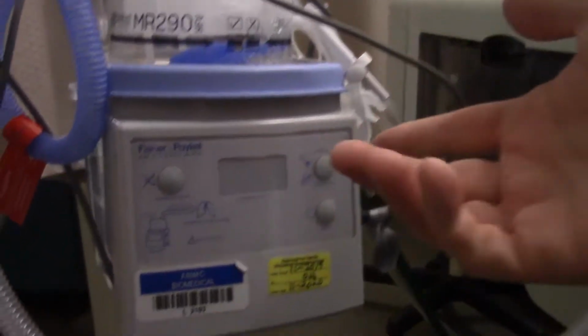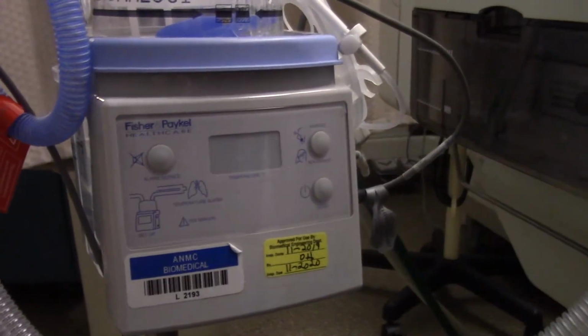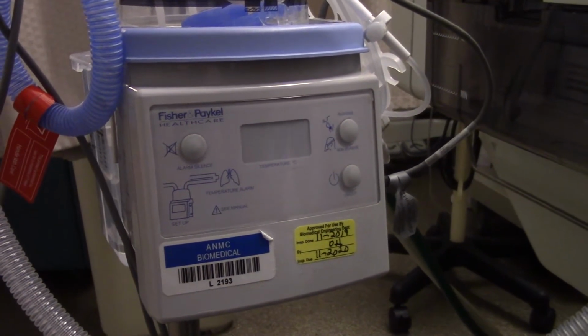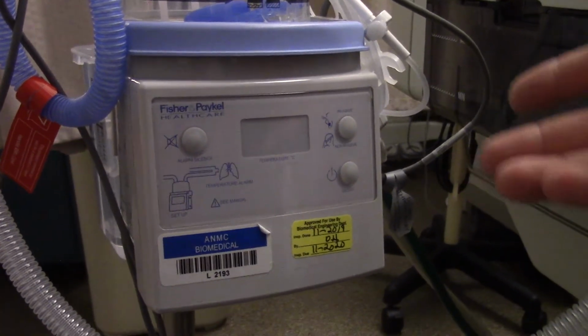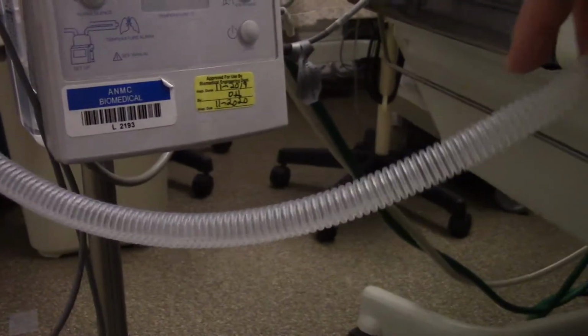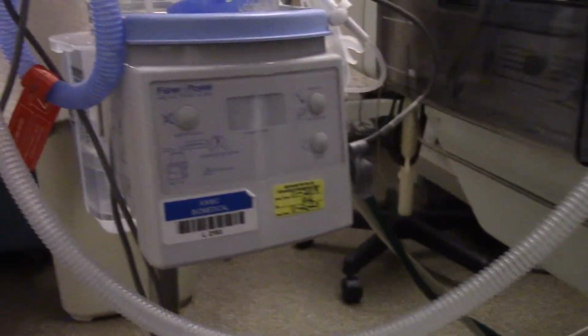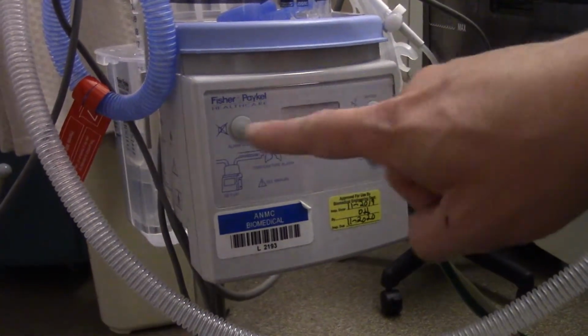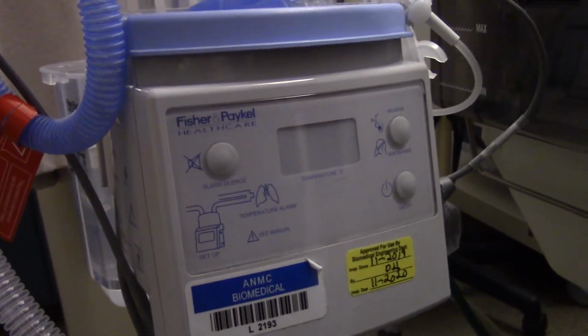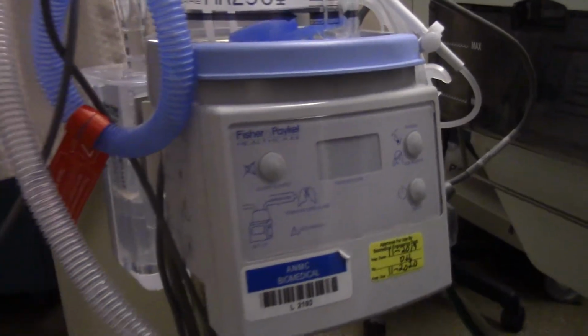Two different settings that it'll be set to. It can either be on an invasive setting at 37 degrees or a non-invasive setting at 31 degrees. Typically you want to start that at 37, but if you have rain out, if you start seeing a lot of water collecting in the chamber, you can decrease it lower for short periods of time. If this starts alarming, just quickly as a side note, typically it's because the water is empty, so just check the water bag that's attached to the setup.